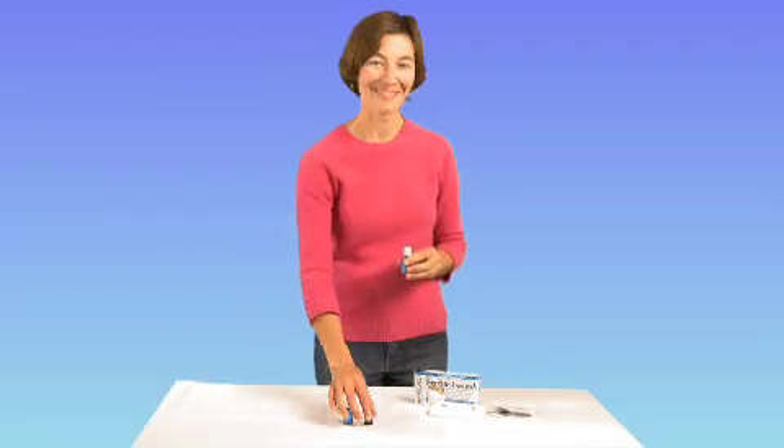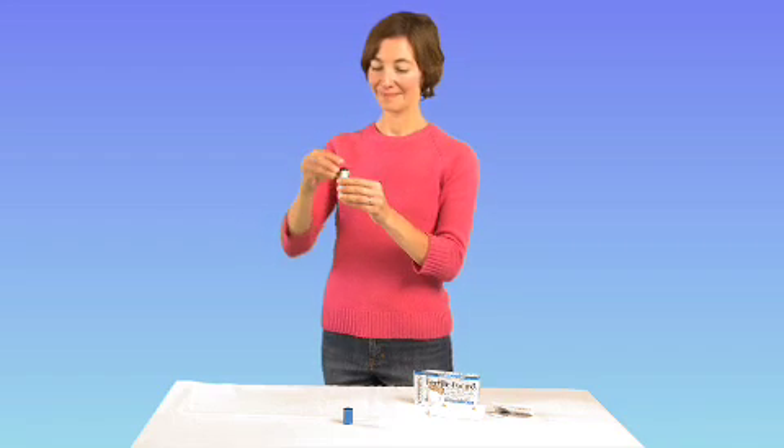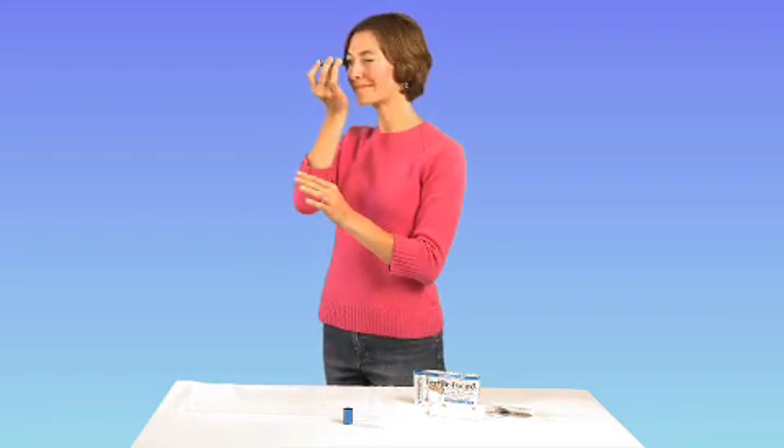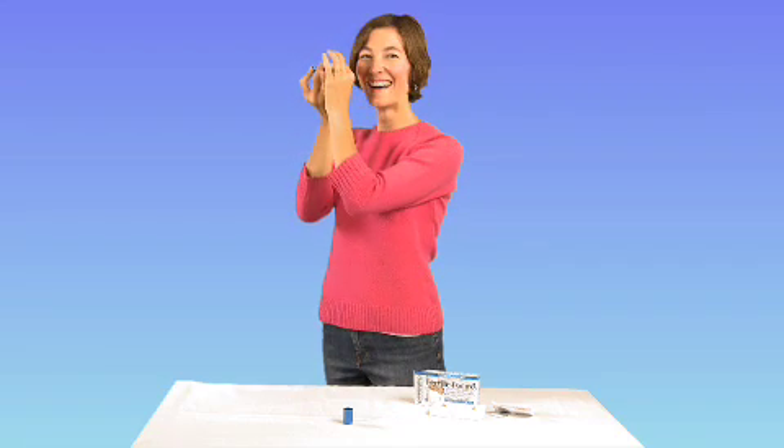After five minutes, replace the lens back into the body of the microscope. To view the results, simply hold it up to your eye and press and hold the light button on the end of the unit. You may need to focus the lens by rotating the very end until the picture becomes sharp.